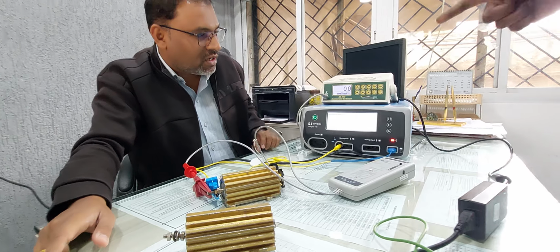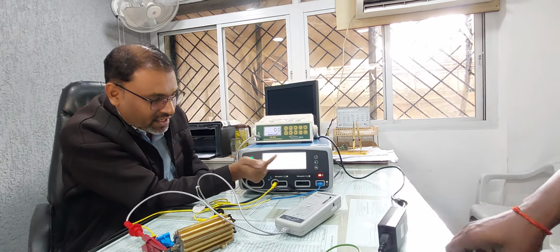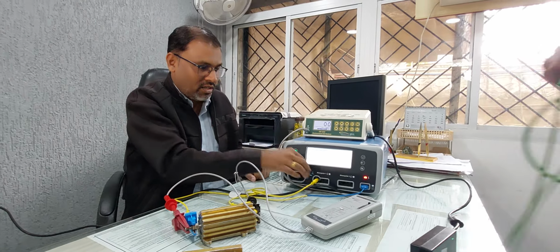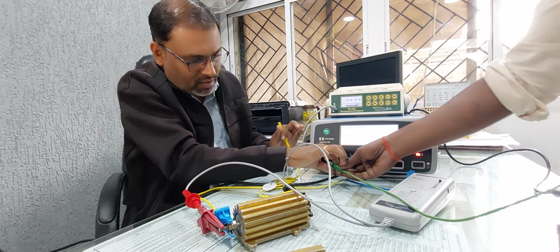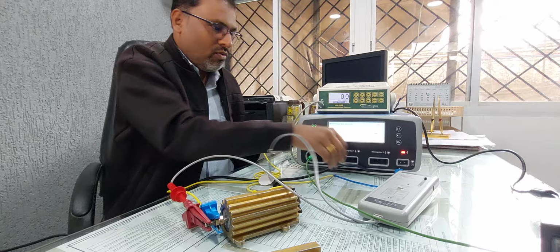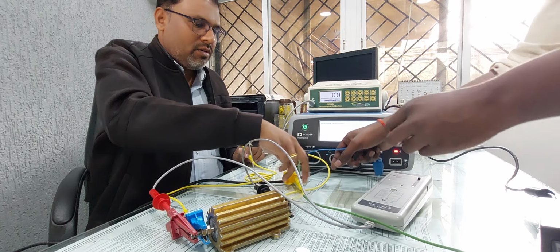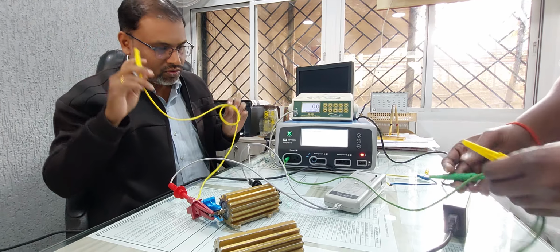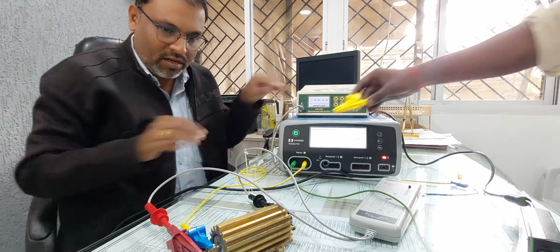This is for the monopolar. Now bipolar calibration is remaining, right? So what is the next instruction? Connect the 5k ohm resistor to the bipolar output. Now we have to connect it to the bipolar. See, we have to connect it to the bipolar. Okay, we have removed this patient plate, it doesn't require it now. Okay, so in this way it will connect here. This is the bipolar.